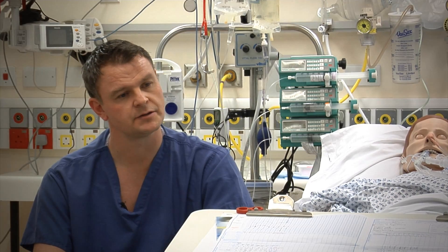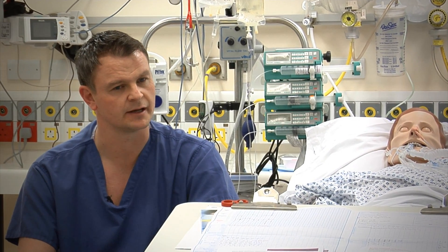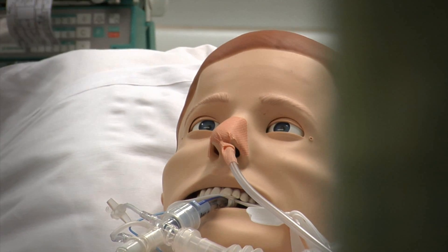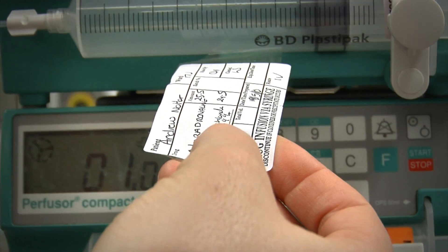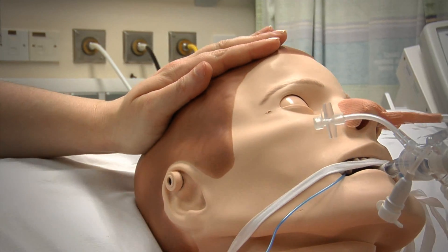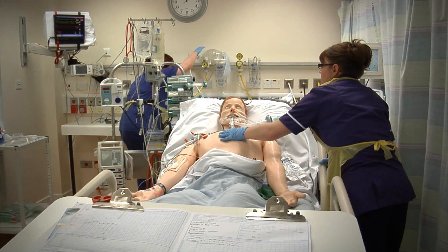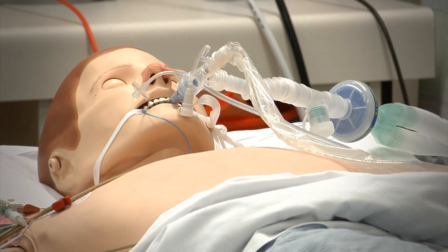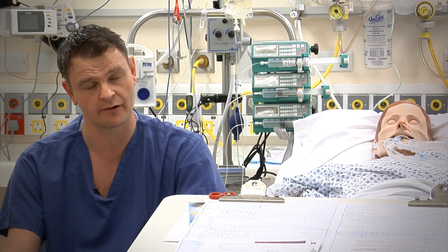I think you can use SimMan essentially in a wide variety of environments. I think really the main problem you would have is keeping the imagination in tow — it's quite difficult. You can actually use this simulator in a wide variety of different environments, from an emergency department through to an operating theatre, through to just a simple ward-based environment where everyday life is happening and will carry on happening.